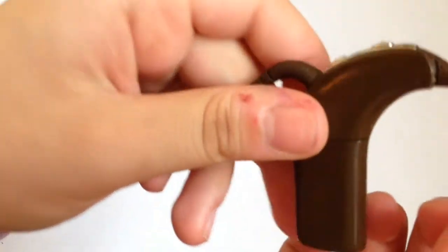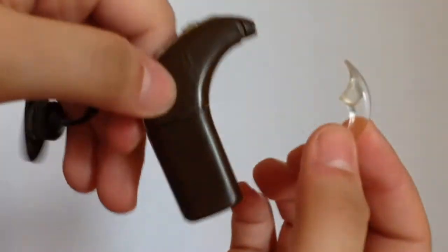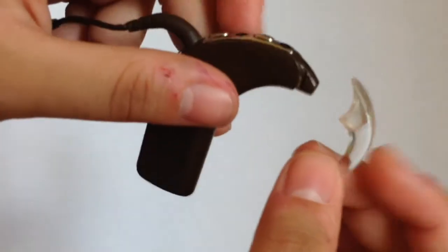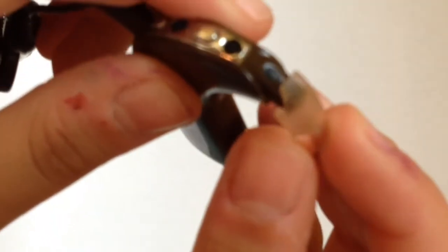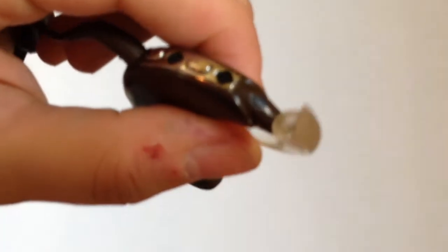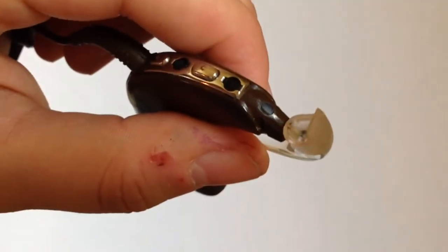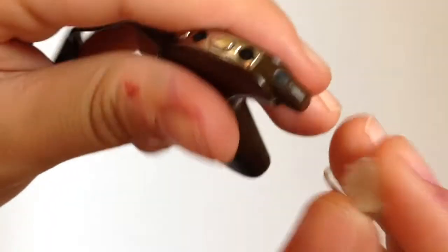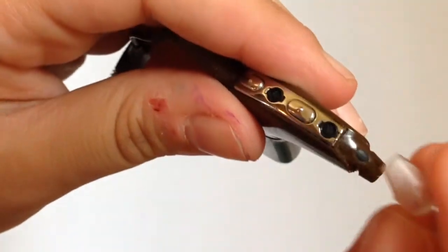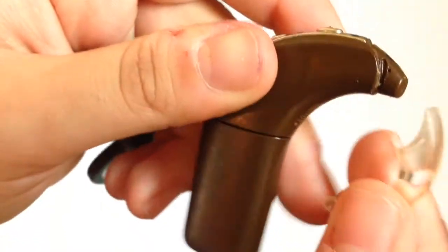And I'm going to show you guys how to put it on and then I'm going to show you guys a safer way to take it off, I mean, I'm sorry. So to put it on, you just snap it. Oh, my camera isn't focused, is it? Focus. Oh, there.